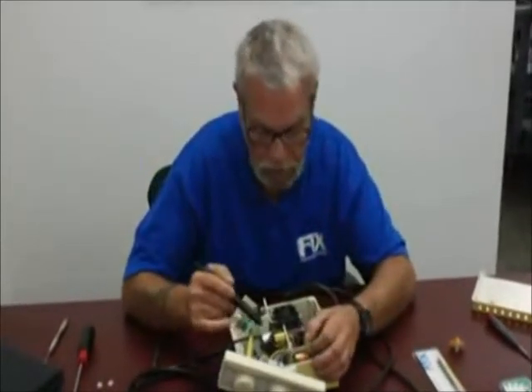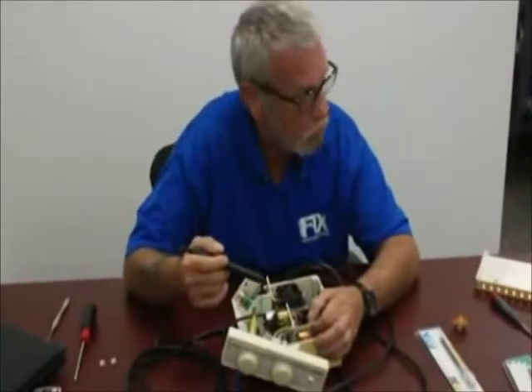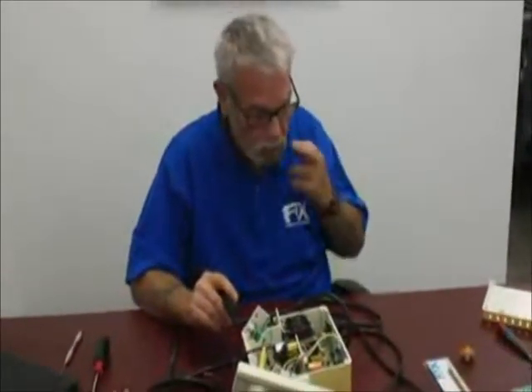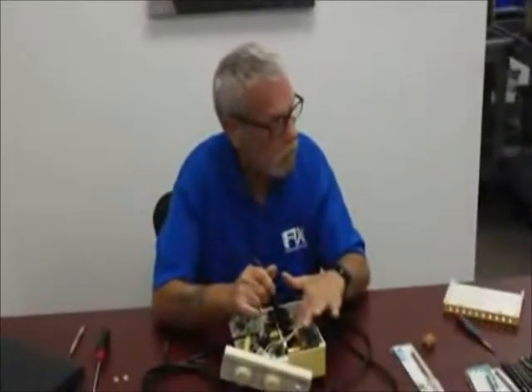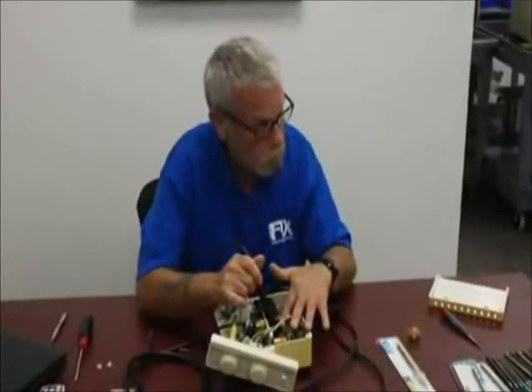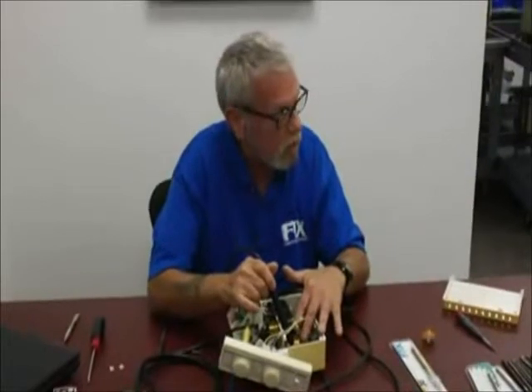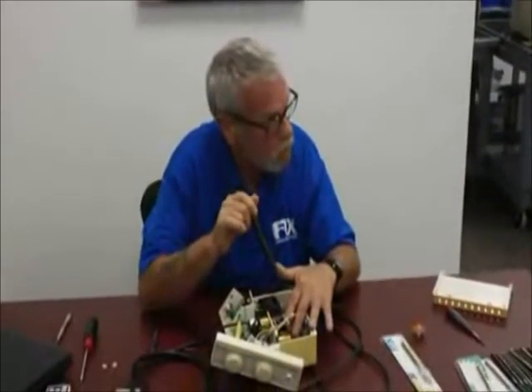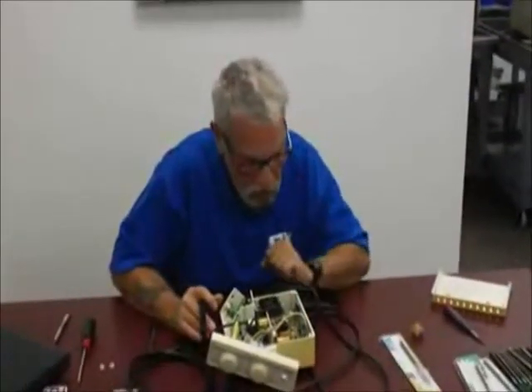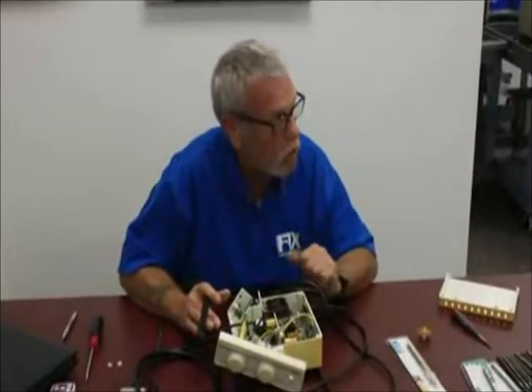Before you do anything to the water system, the solenoid, or make a handpiece connection, make sure the water is disconnected and the power is off. If you spill or drip water on the board and power it back up, you're going to smoke the board. With a can of compressed air — which I highly advise everybody to carry — or a doctor's syringe, take the air and dry the board off thoroughly. Use your eyes and look for moisture on that board before powering up.